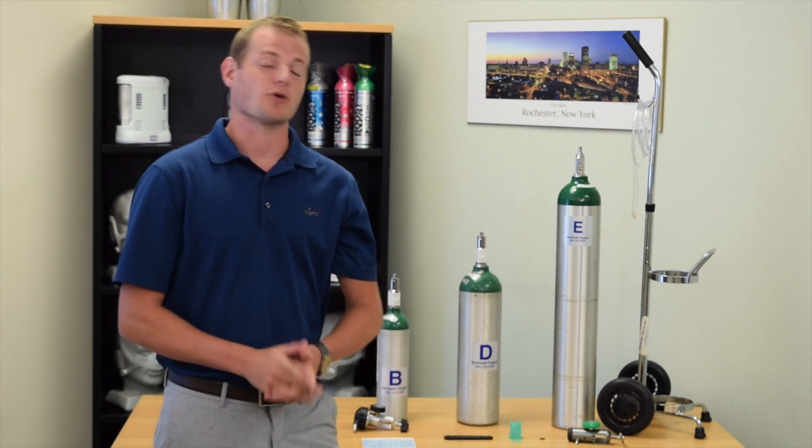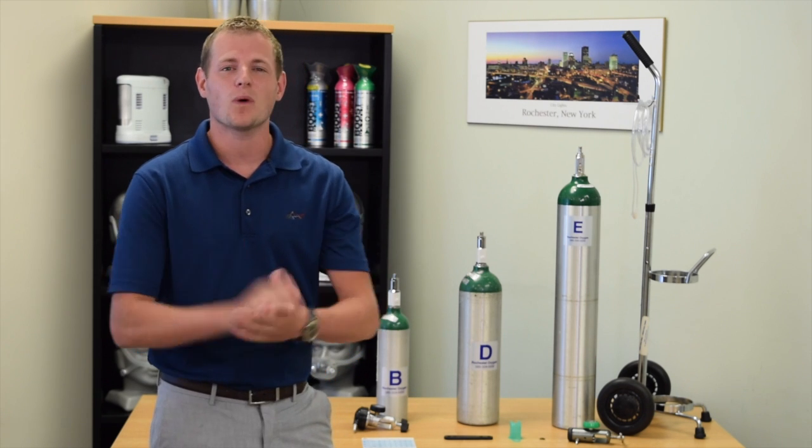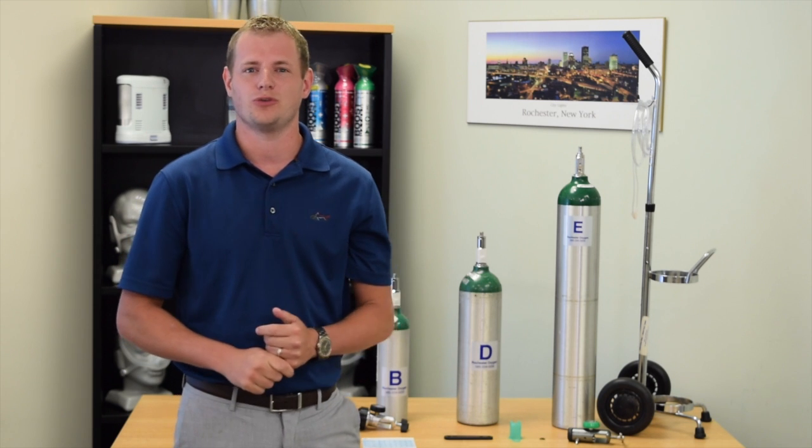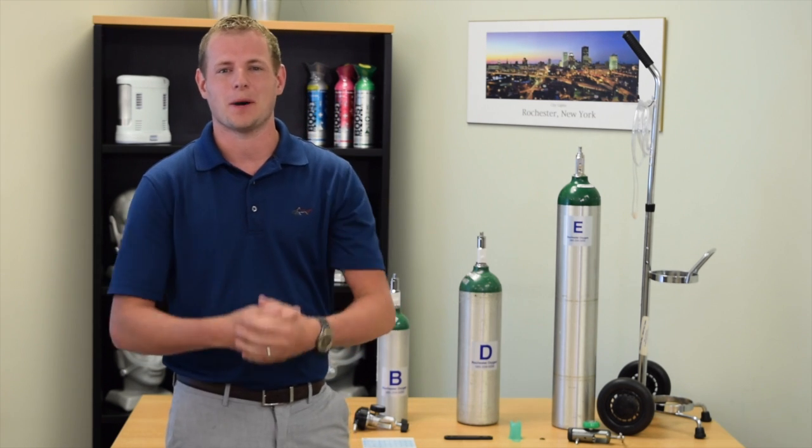Hi, my name is Mike. I'm a respiratory therapist and today I want to talk a little bit about oxygen tanks, when and how to use them, as well as the equipment needed to set them up.